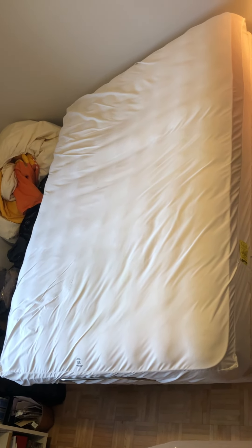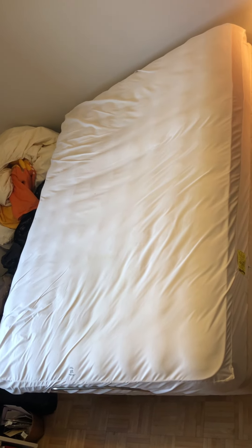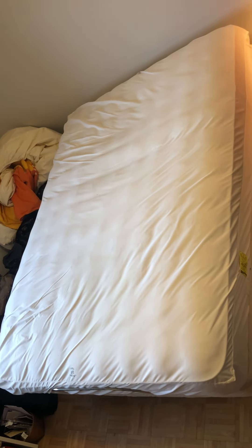Hello, this is a short video about an adjustable bed with massage function in the mattress, which is ideal for a senior who has mobility issues, anyone who's had an injury, who needs to have the mattress raised up at the back or be able to raise their feet.